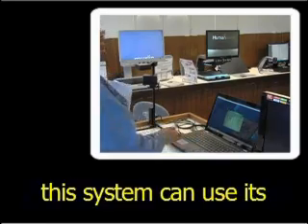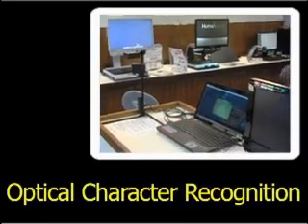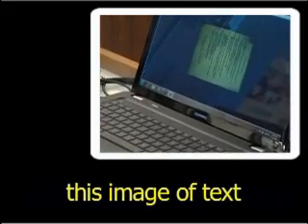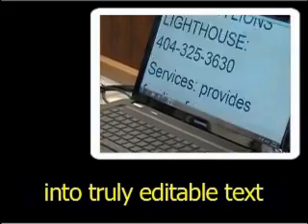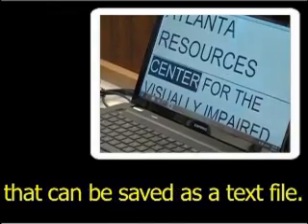If the user chooses, this system can use its optical character recognition software to convert this image of text into truly editable text that can be saved as a text file.